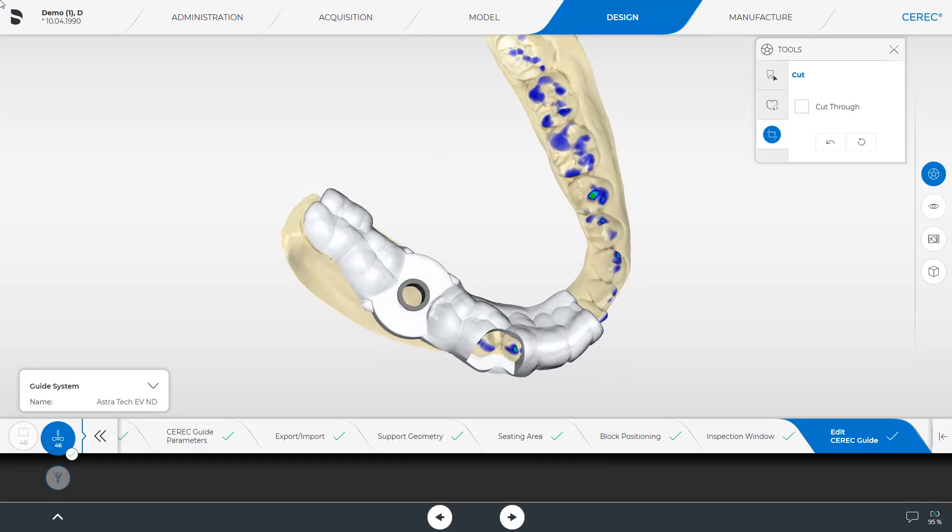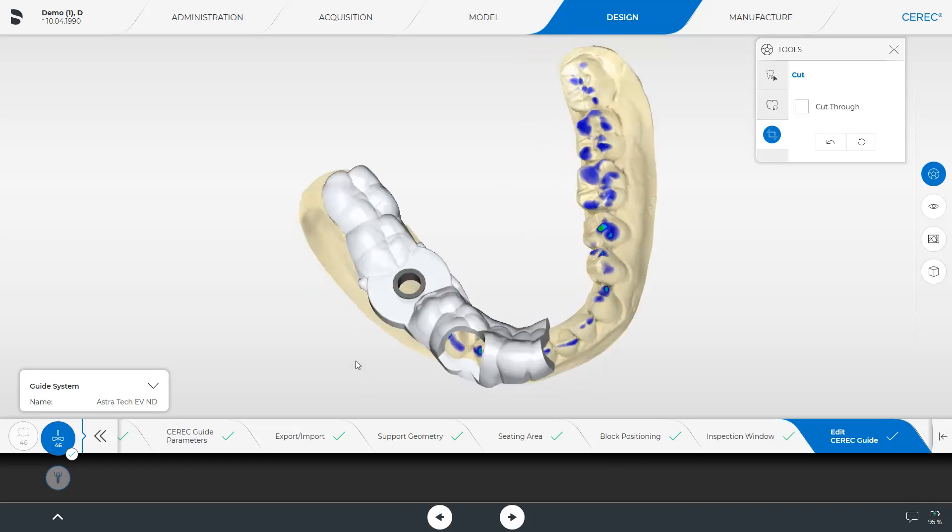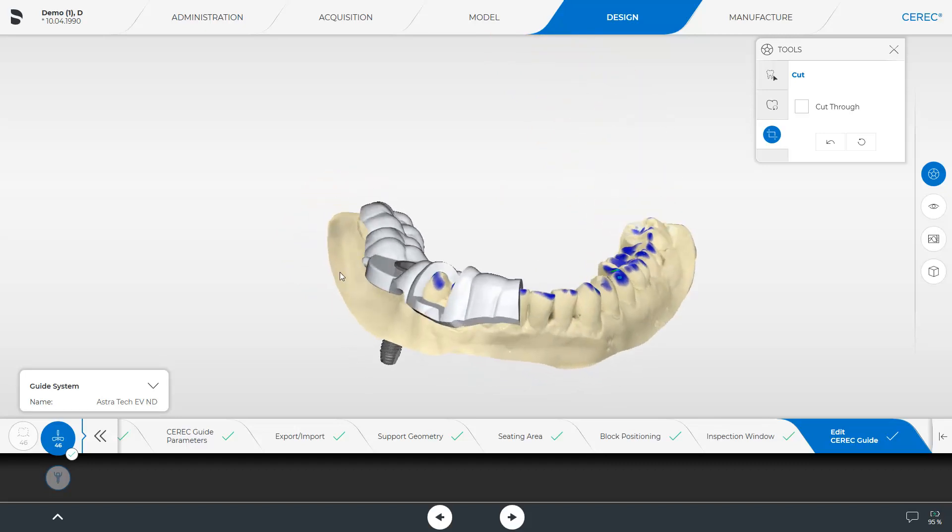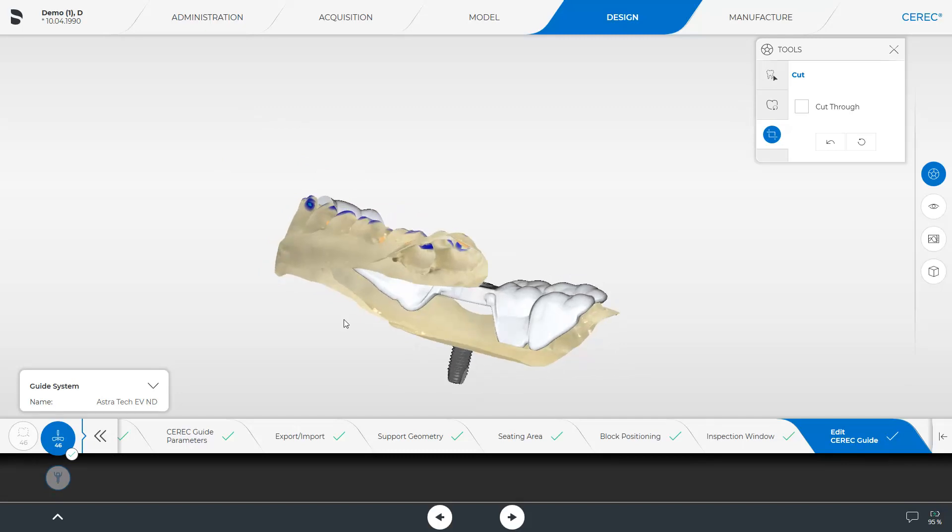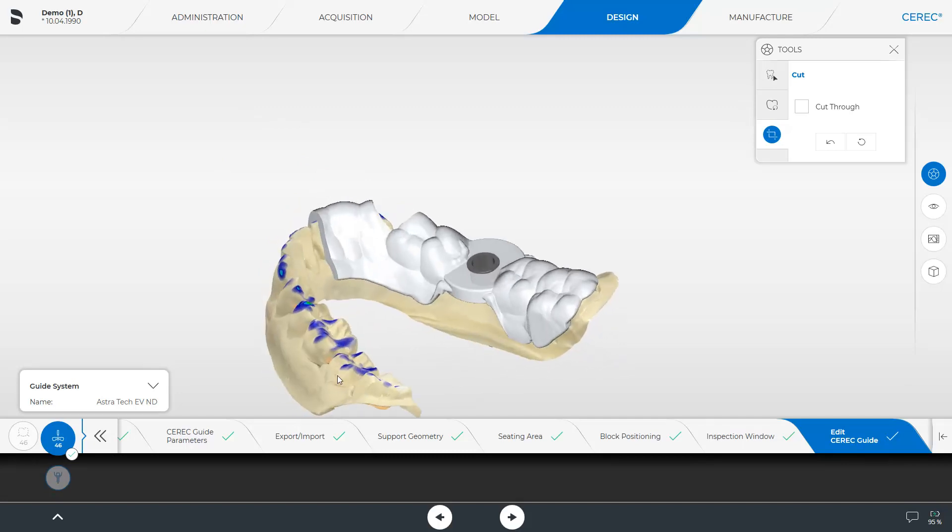Then, we place another cut in the anterior region, making sure that the cutting edge is approximately centered above one of the incisors. This is again used to check the secure guide fit inside the patient's mouth. At this point, we skip the lingual side cut, and next, you will see the already shortened guide.